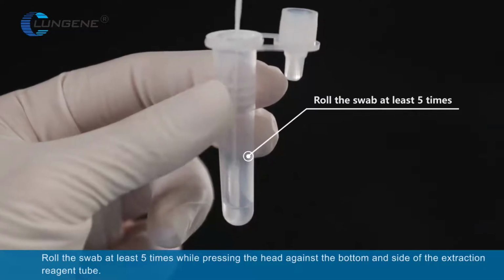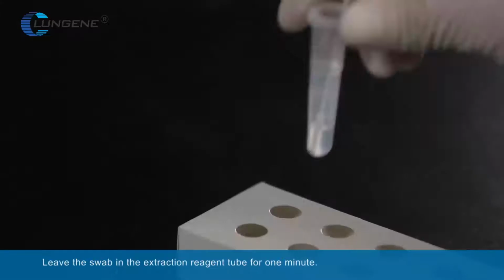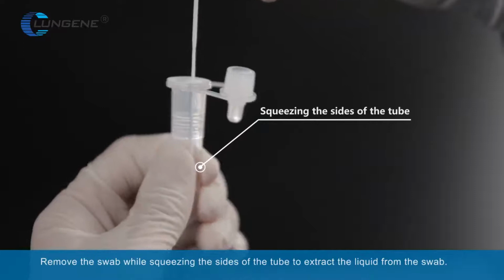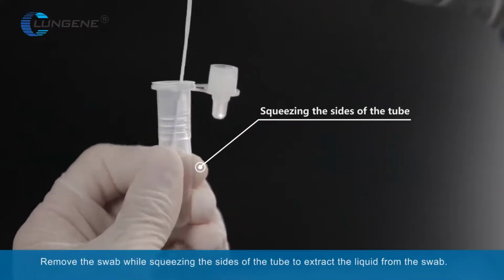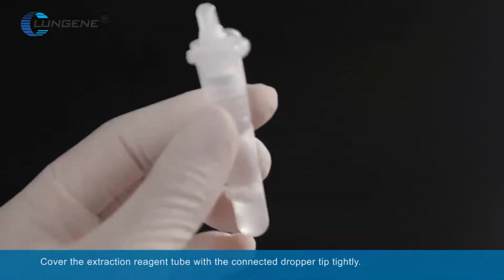Roll the swab at least 5 times while pressing the head against the bottom and side of the extraction tube. Leave the swab in the extraction tube for 1 minute. Remove the swab while squeezing the sides of the tube to extract the liquid from the swab. Cover the extraction reagent tube with connected dropper tip tightly.